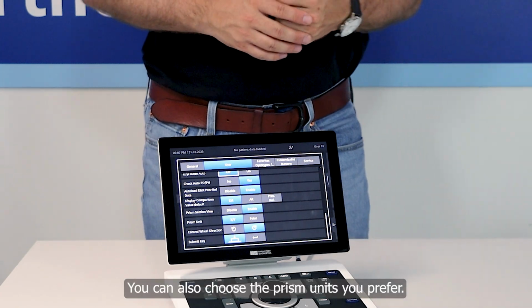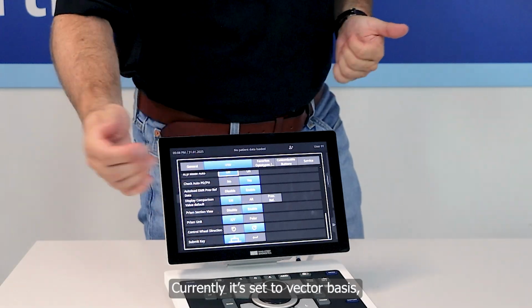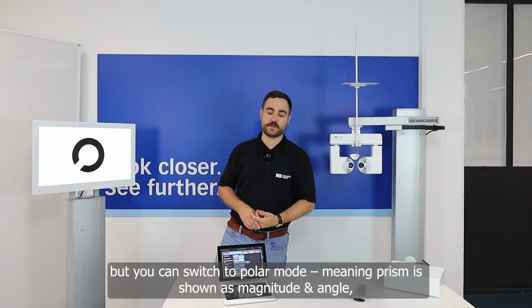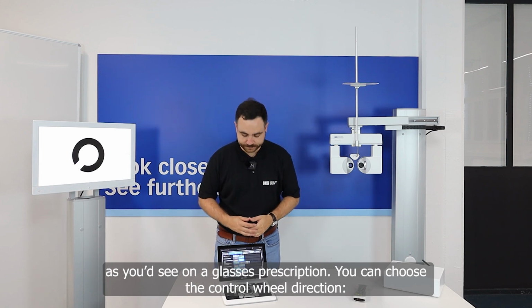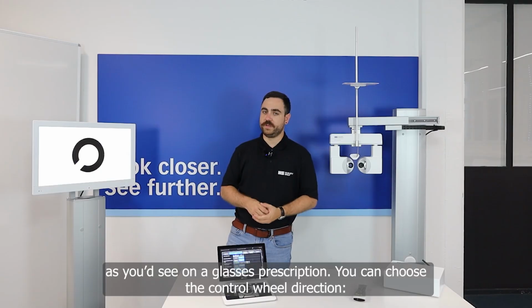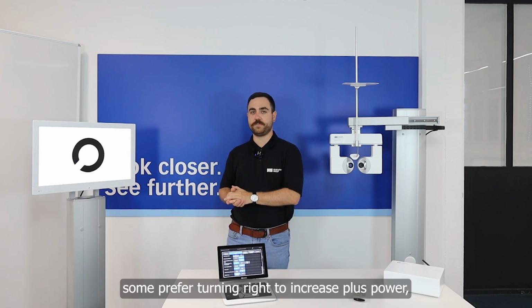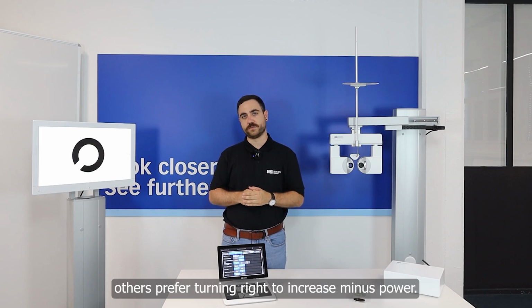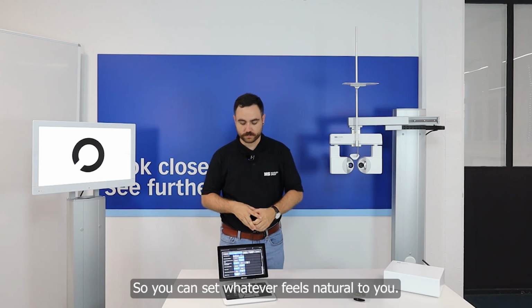Also the prism units, you can choose as you prefer. Currently it's activated with vector basis, but you could also say, I want to have it in polar mode, which means the prisms are measured the way you will have them in the end in the glass. And you can choose the control wheel direction. If you turn it to the right, some people like to have a plus diopter, but other people want a minus diopter when turning the control wheel to the right. We want to say, do it however you learned it and however you prefer it.